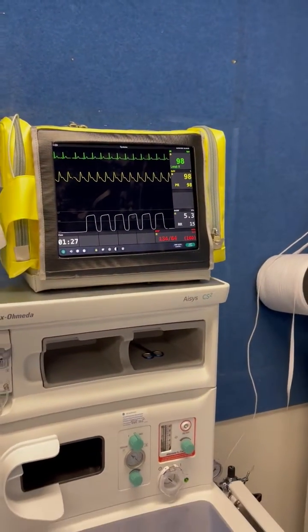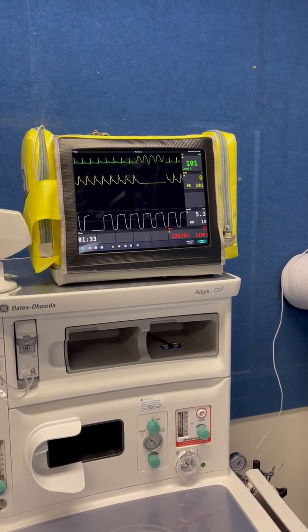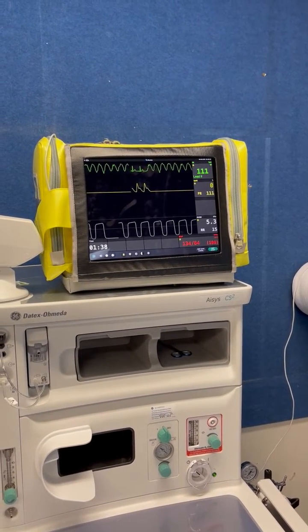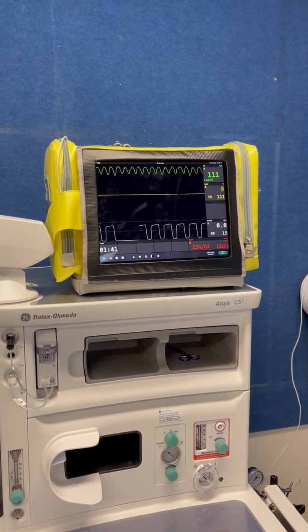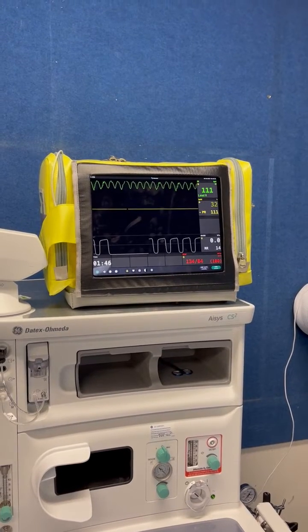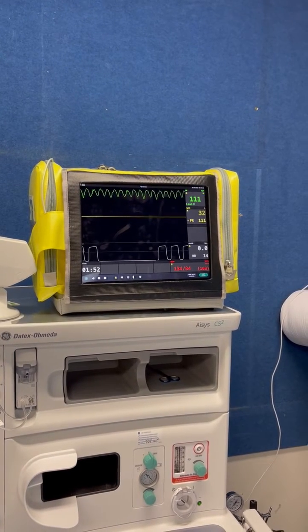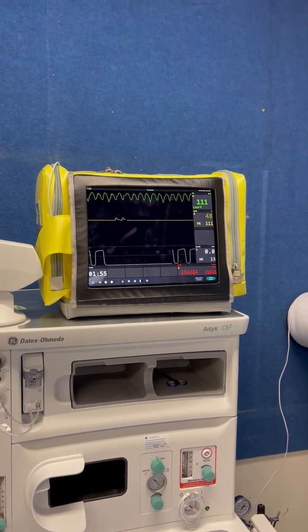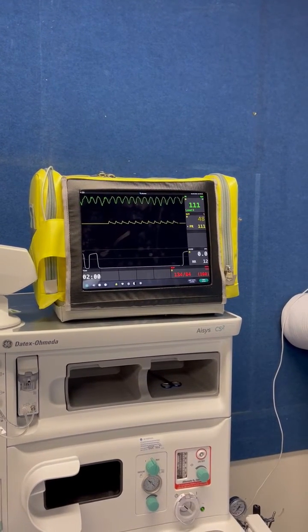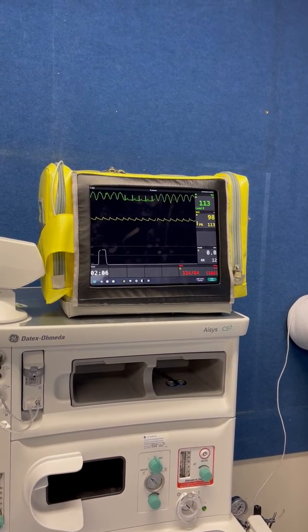When we announce that the patient is in cardiac arrest, this is what you can expect. The ECG waveform may correlate with your chest compressions, and you may get some pulse oximeter trace that also correlates with your chest compressions — or you might not. That's what will happen when you're doing CPR. At the end of your CPR, it will go back to normal.